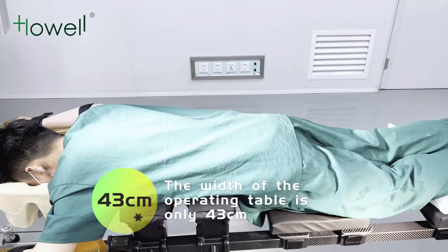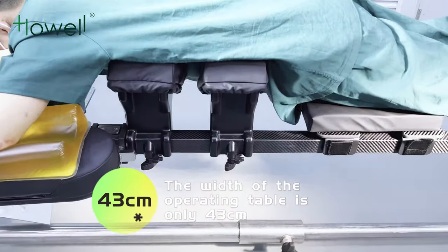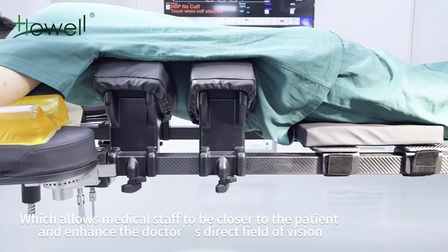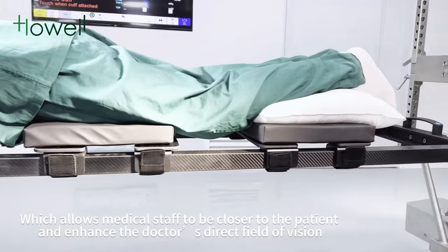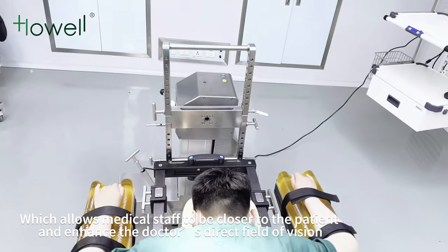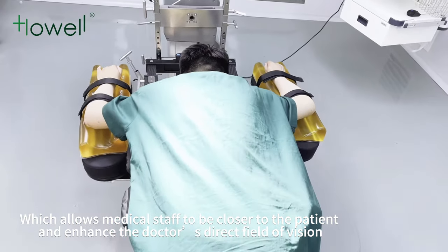The width of the operating table is only 43 centimeters, which allows medical staff to be closer to the patient and enhances the doctor's direct field of vision.